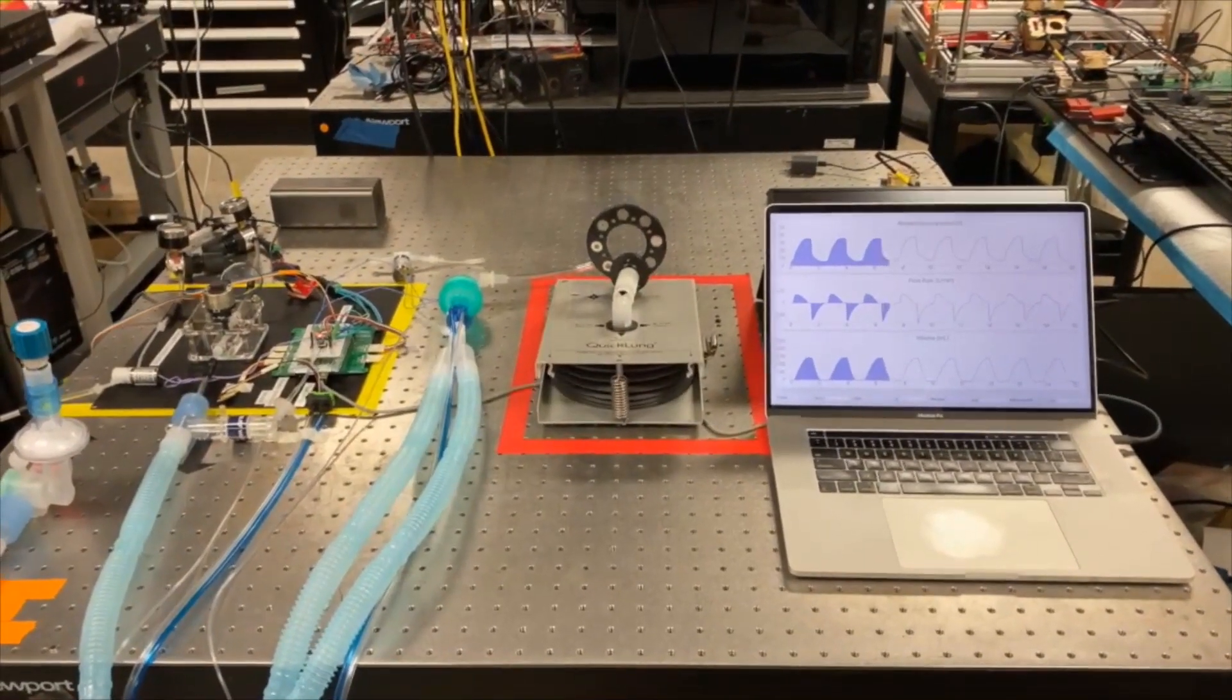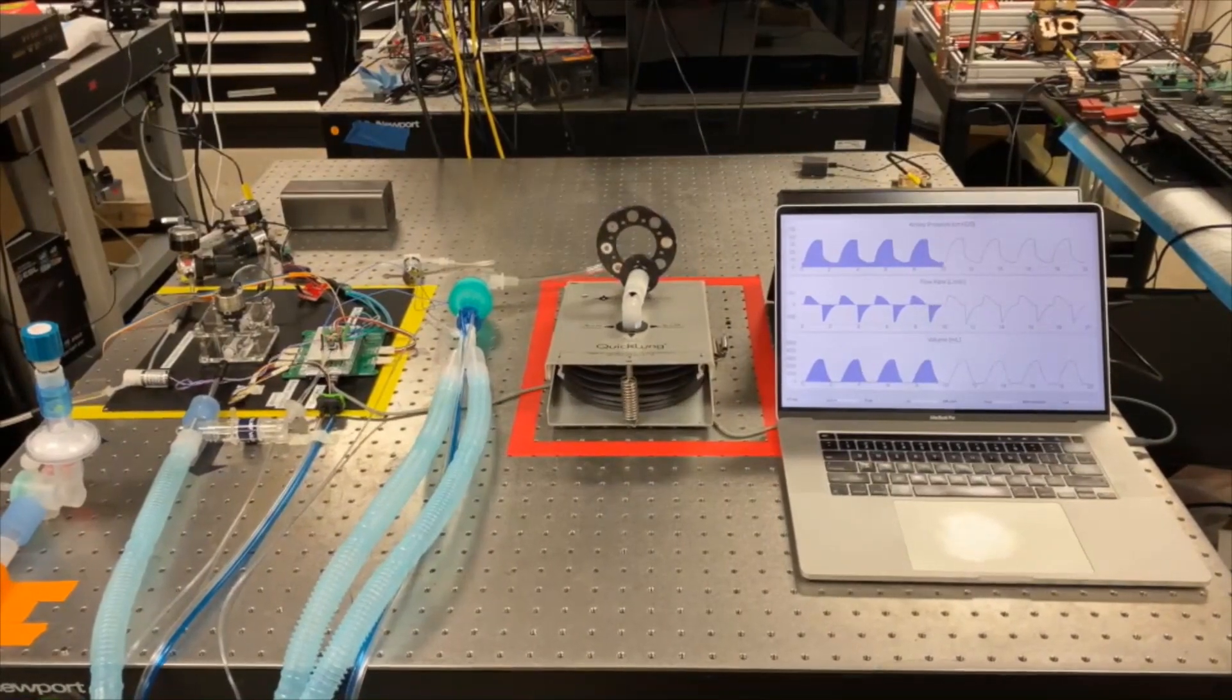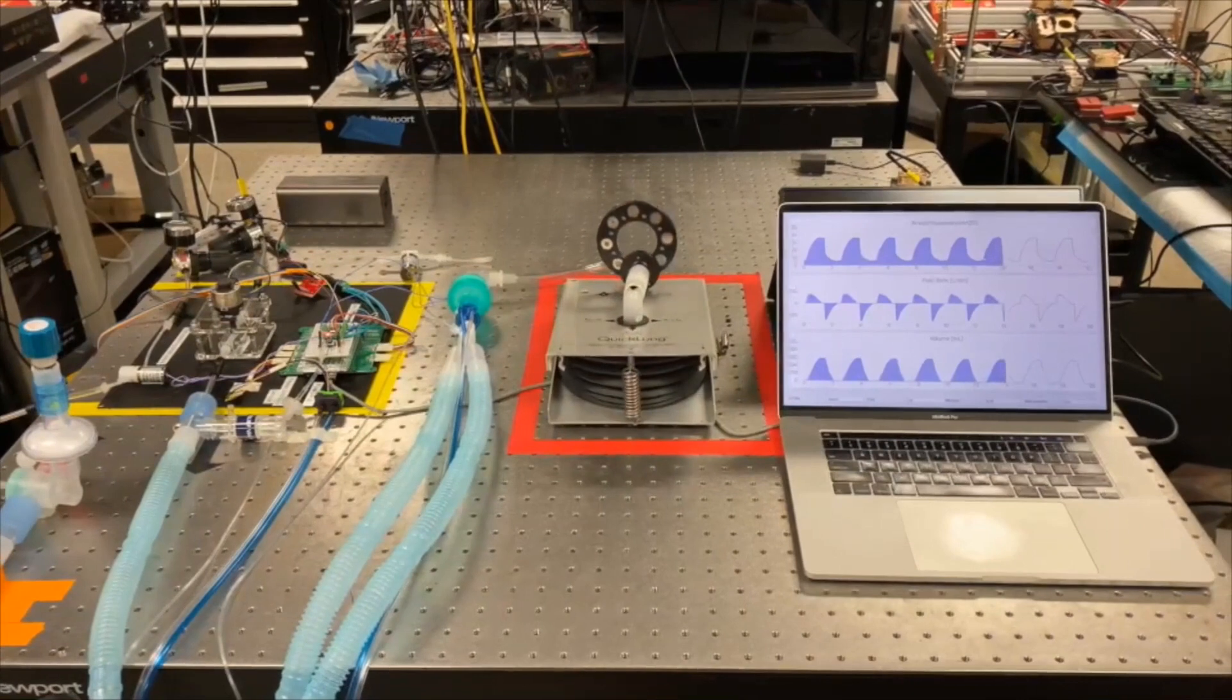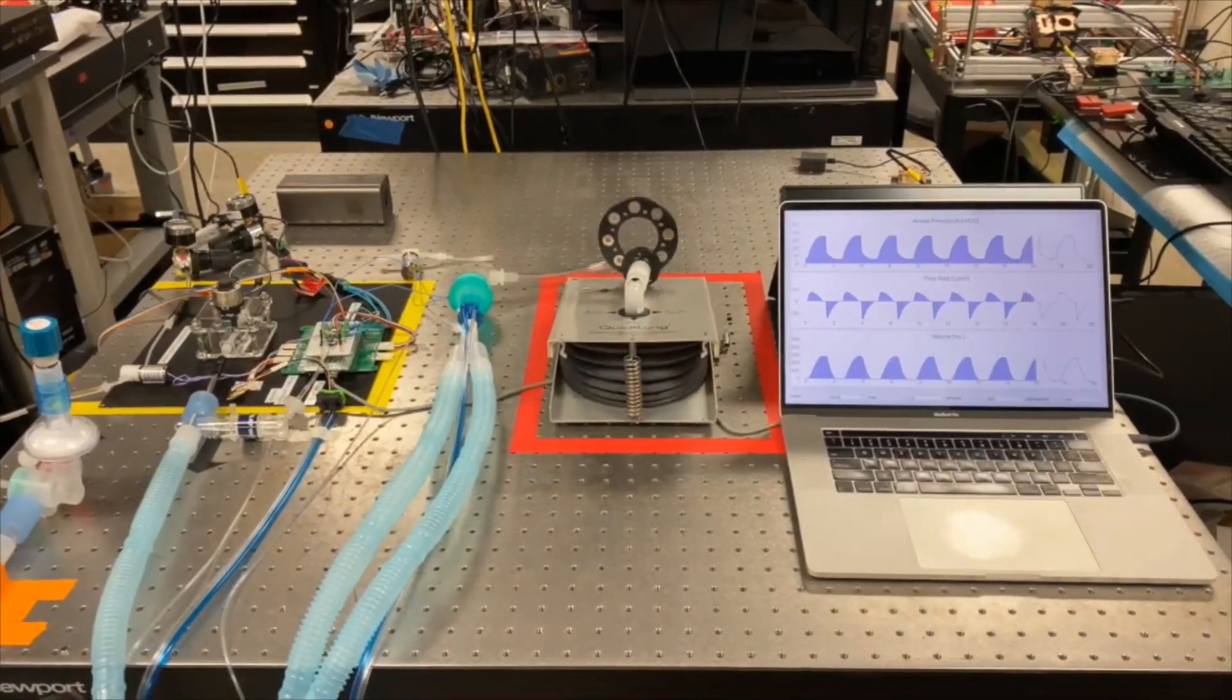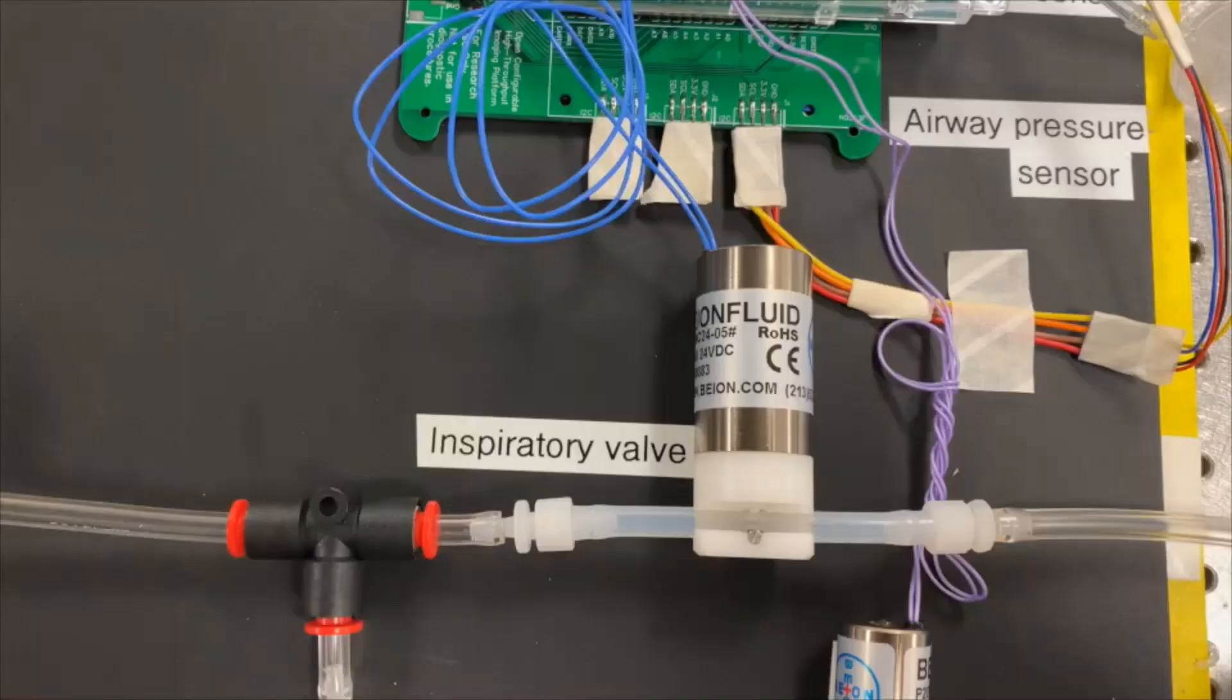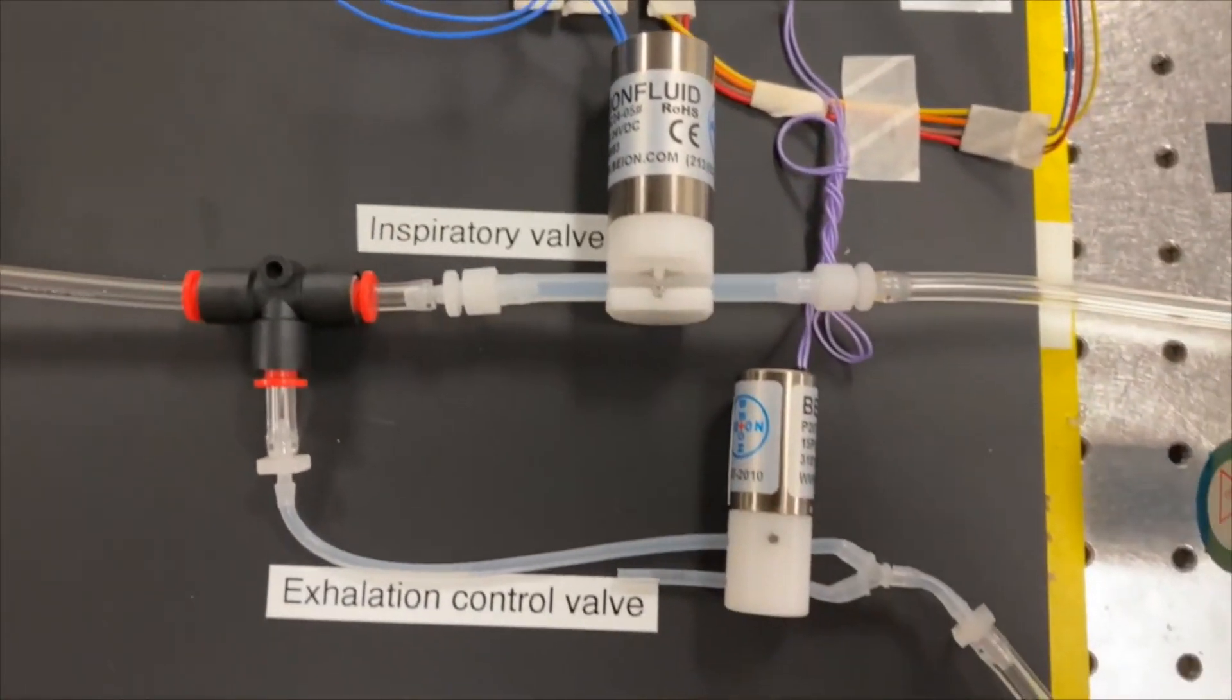One of the key design principles and philosophies that we've been focused on in building this ventilator is to not rely on the classical supply chain. We don't just have shortage of ventilators. We have the shortage of regularly used medical supply that's used in building ventilators.